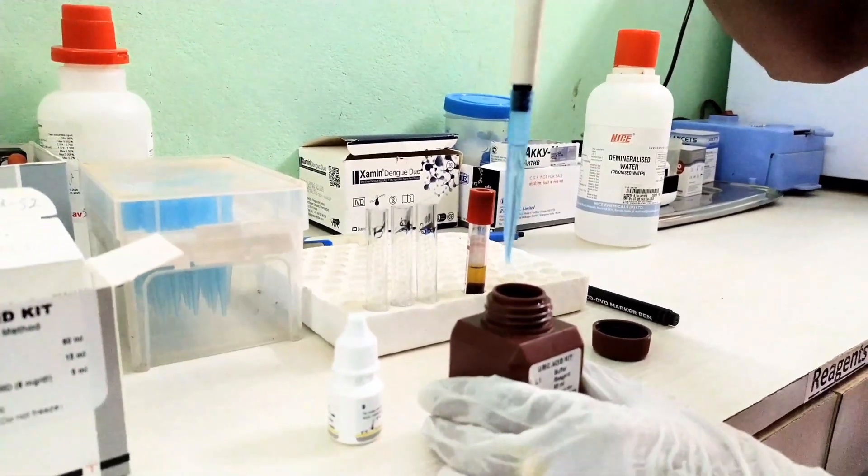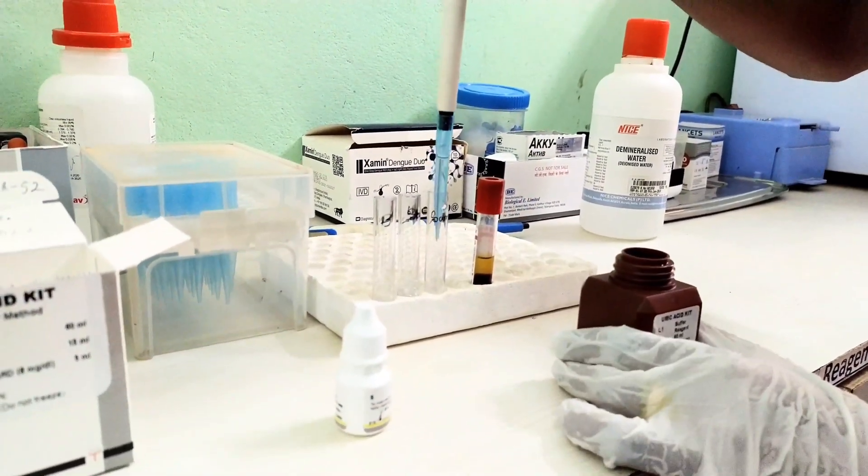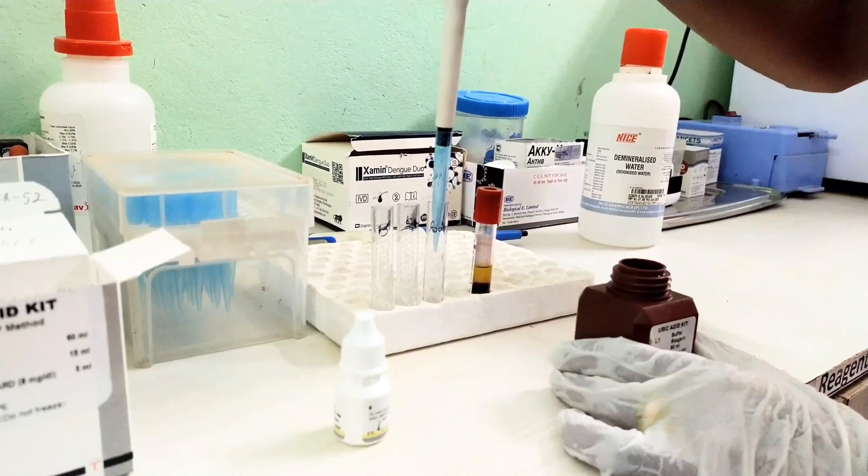Lastly, take again 1000 µL reagent in the sample or test marked test tube.